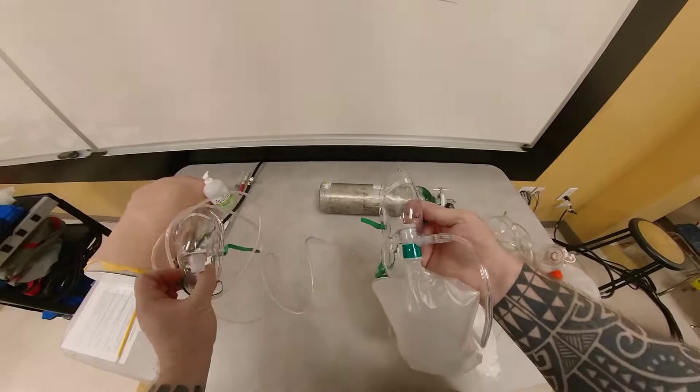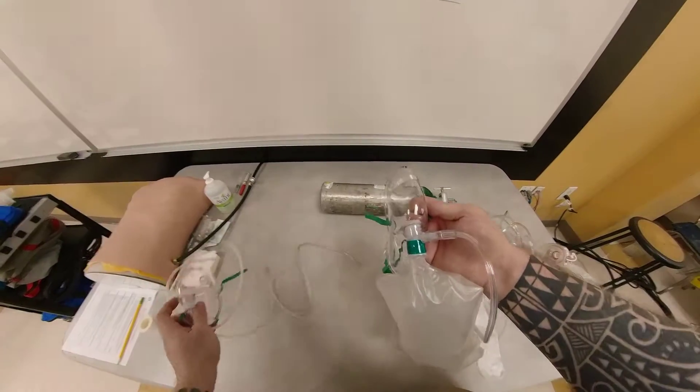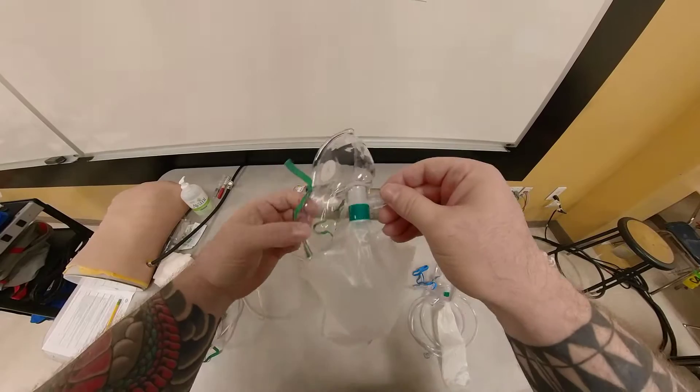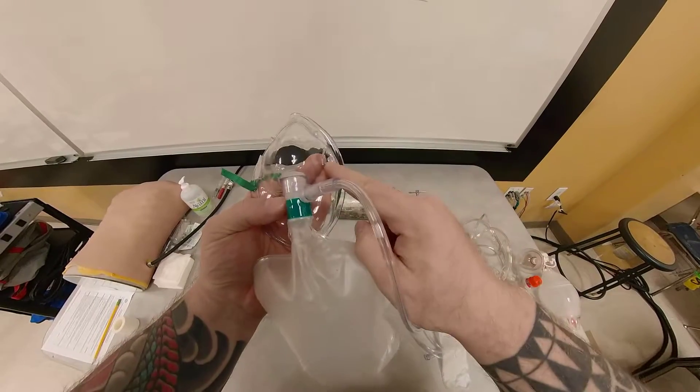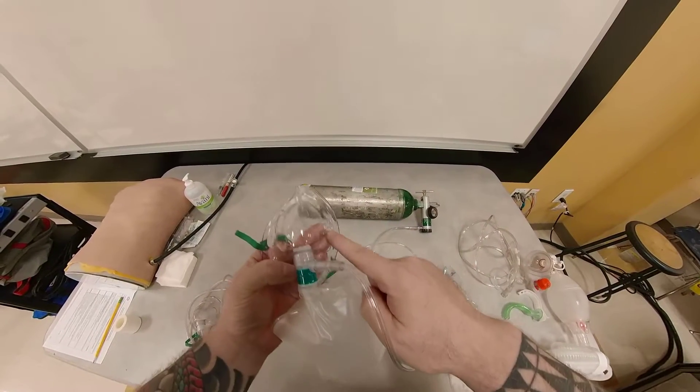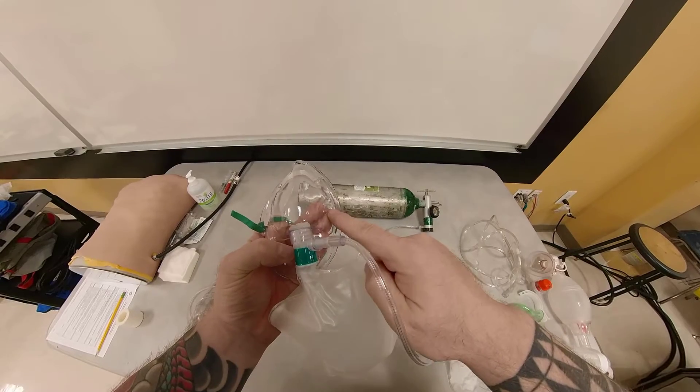On the other mask that I held, the simple face mask, both of these were missing. So here, there's only one that's missing. So what's the problem with that? The first problem is that you're entraining room air, which is about 21% oxygen and 79% nitrogen.